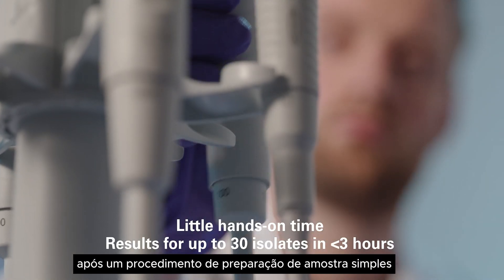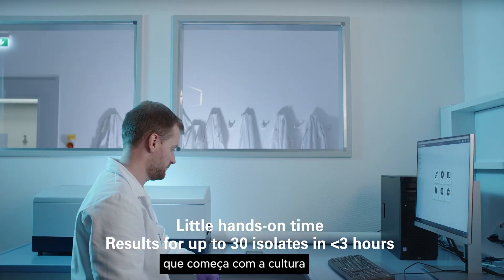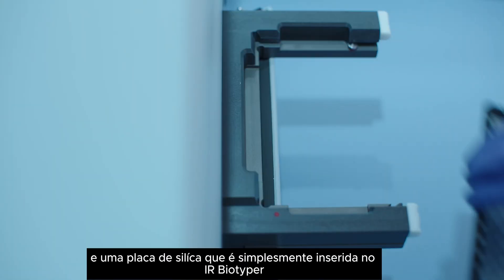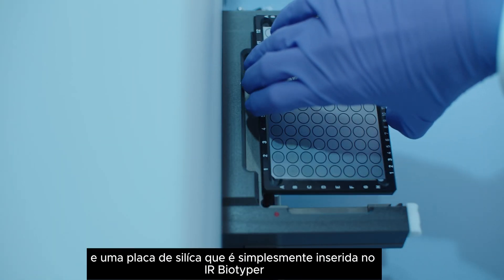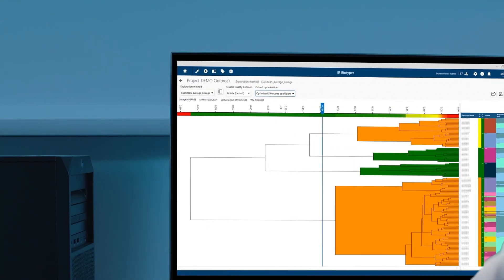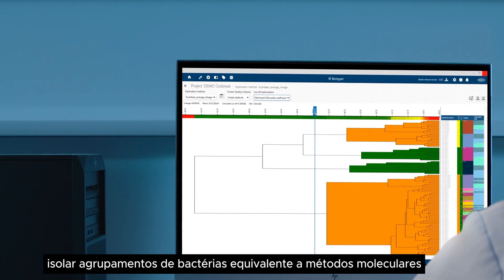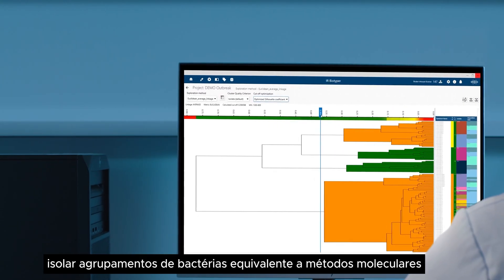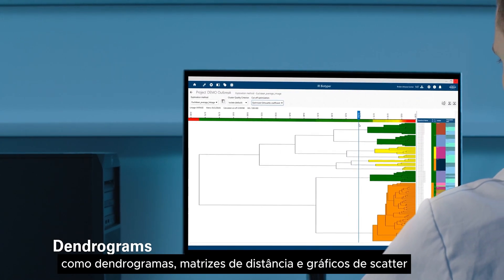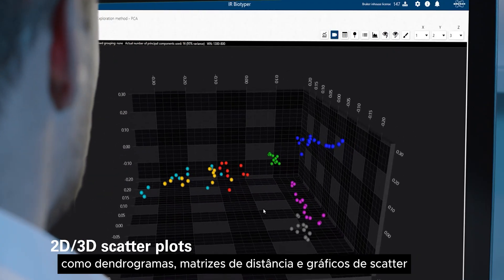After a straightforward sample preparation procedure that starts from a culture, the silicon plate is simply inserted into the IR Biotyper and the analysis begins. Isolate clustering, equivalent to molecular methods, is visualized through convenient tools such as dendrograms, distance matrices, and scatter plots.